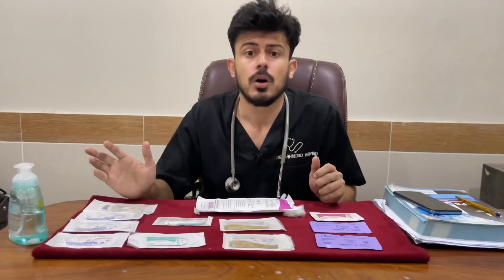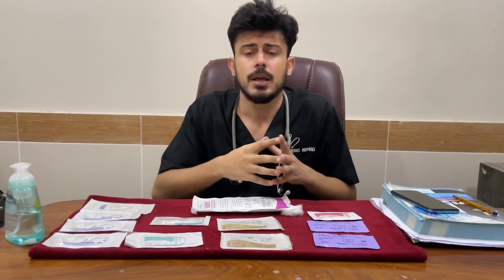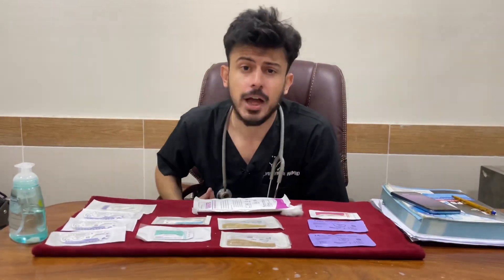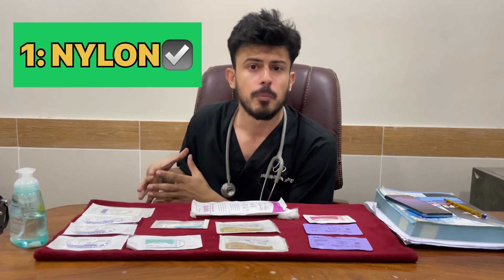The examples of absorbable suture are Vicryl, cat gut, PDS, and Monocryl. Monocryl is considered one of the most common types of absorbable suture. The examples of non-absorbable suture are nylon and Prolene.